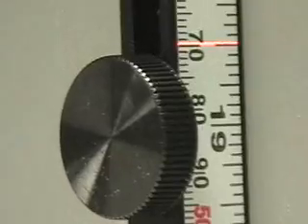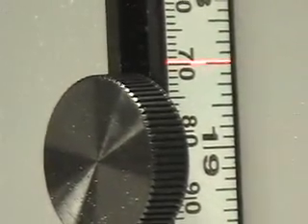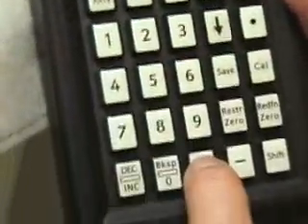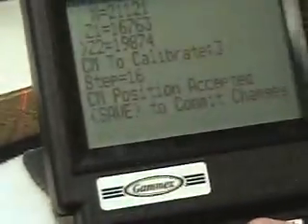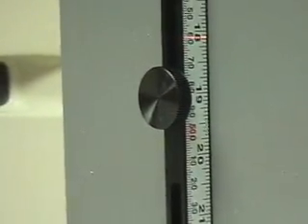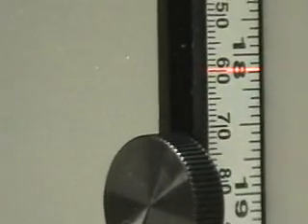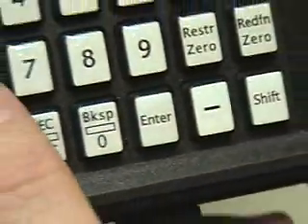The up arrow — positive centimeter. It needs to be adjusted. Left arrow to move it down. Once it's good, enter again. And then go on to the next centimeter — centimeter calibrate four. Walk it up to four. It should be the fourth centimeter from where we started. We adjust it, it needs to move down just a little bit. That's good, so now we're going to enter it.